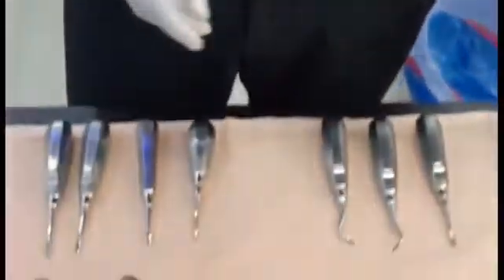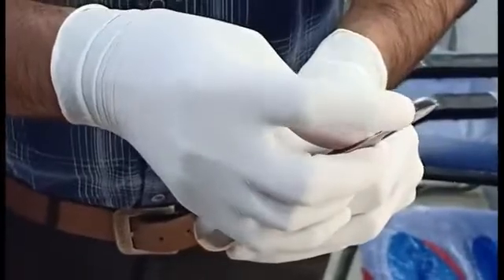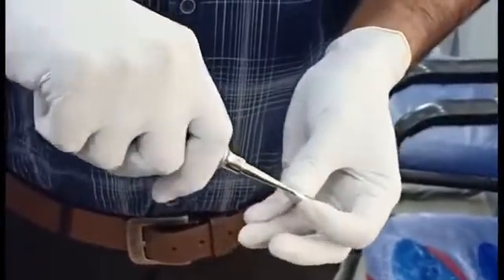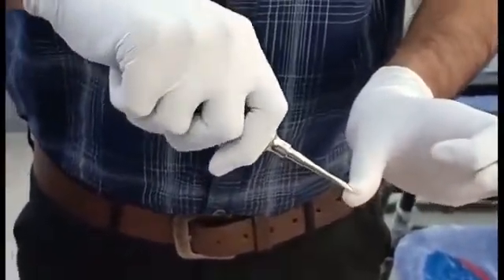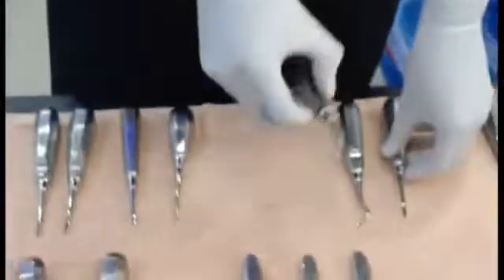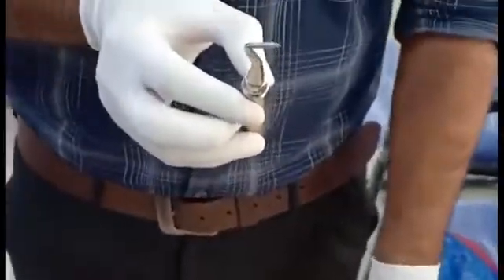The next we have is the apex elevator — this is a straight apex elevator. You can see it has a concave surface and a convex surface. The concave surface or curved surface should always be towards the tooth surface. It can be used with the wedge principle to luxate the tooth and to retrieve root tips.